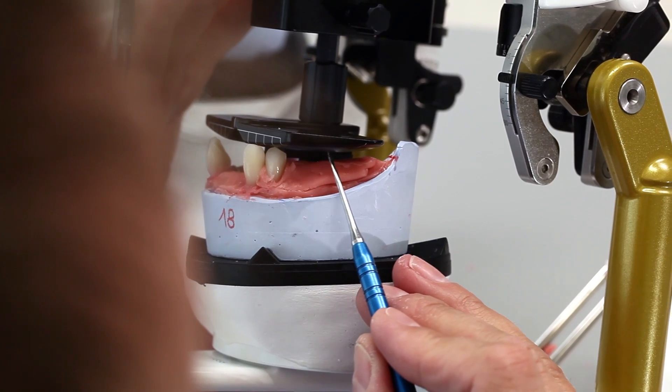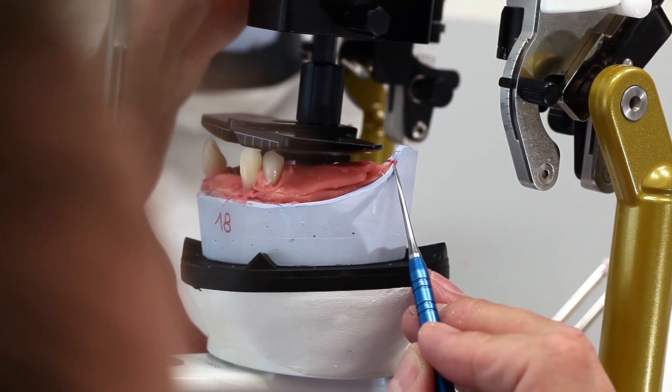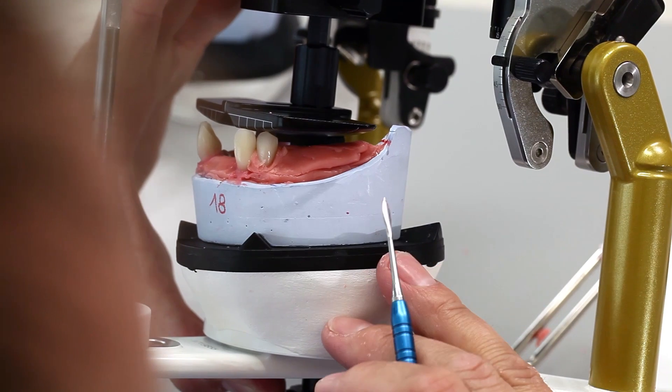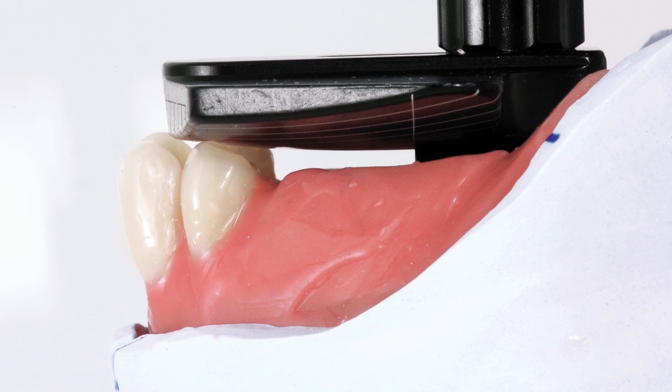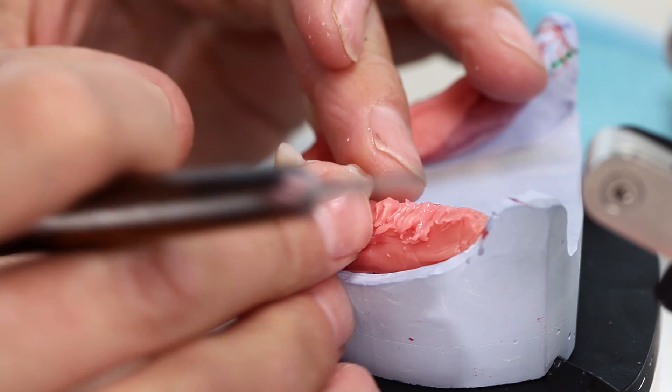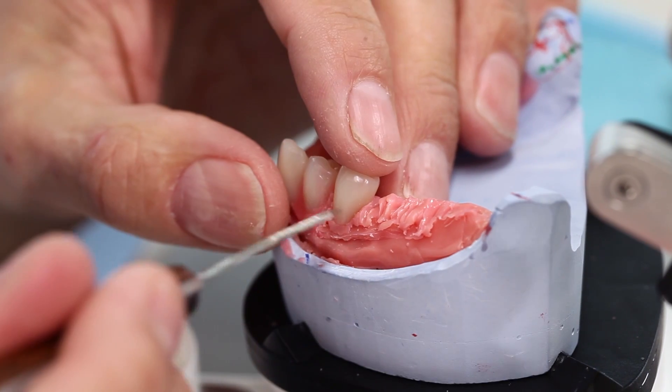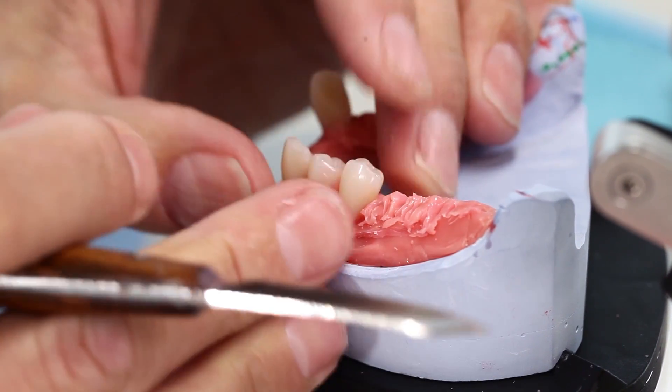In the posterior area, the underside of the template ends in the area of the distal thirds of the retromolar pads. With the setting up template, the curves of Wilson and Spee are automatically taken into consideration. This results in a bilateral standardized Monson compensating curve with the posterior teeth. Now, the mandibular type posterior teeth can be symmetrically aligned with the template on both sides.